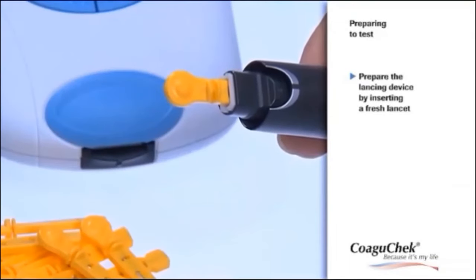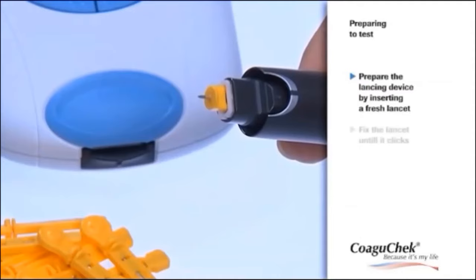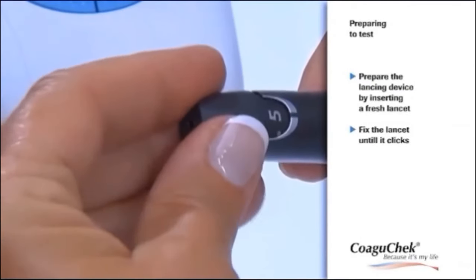Now you are ready to prepare the lancing by inserting a fresh lancet into the lancing device. Fix the lancet and keep the device nearby.